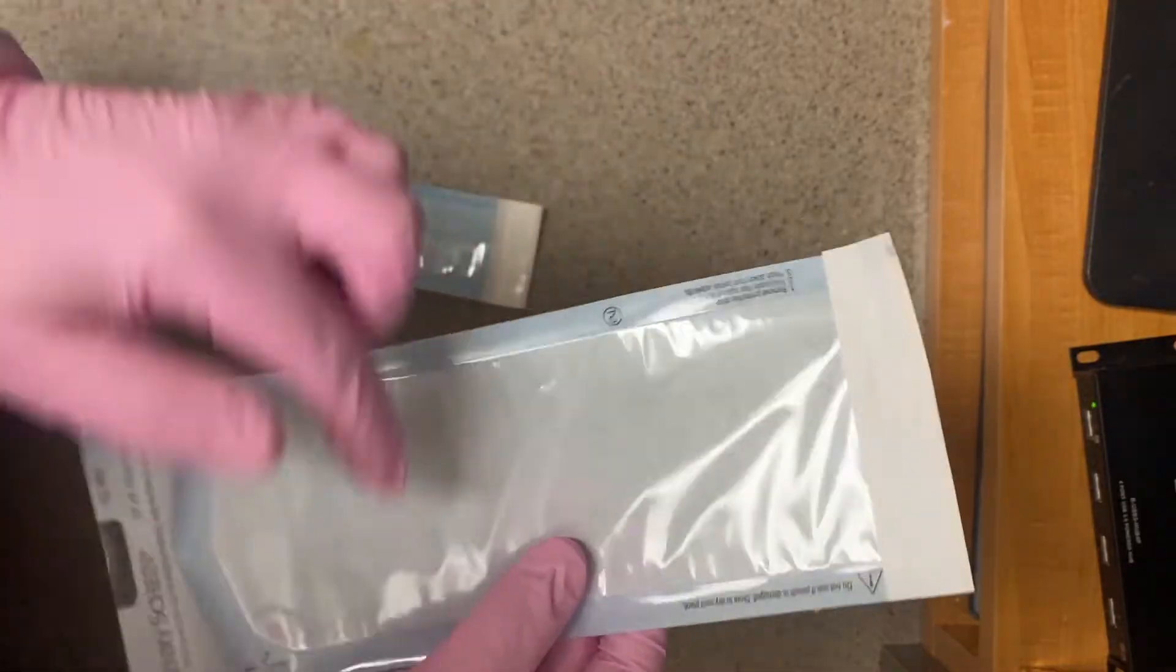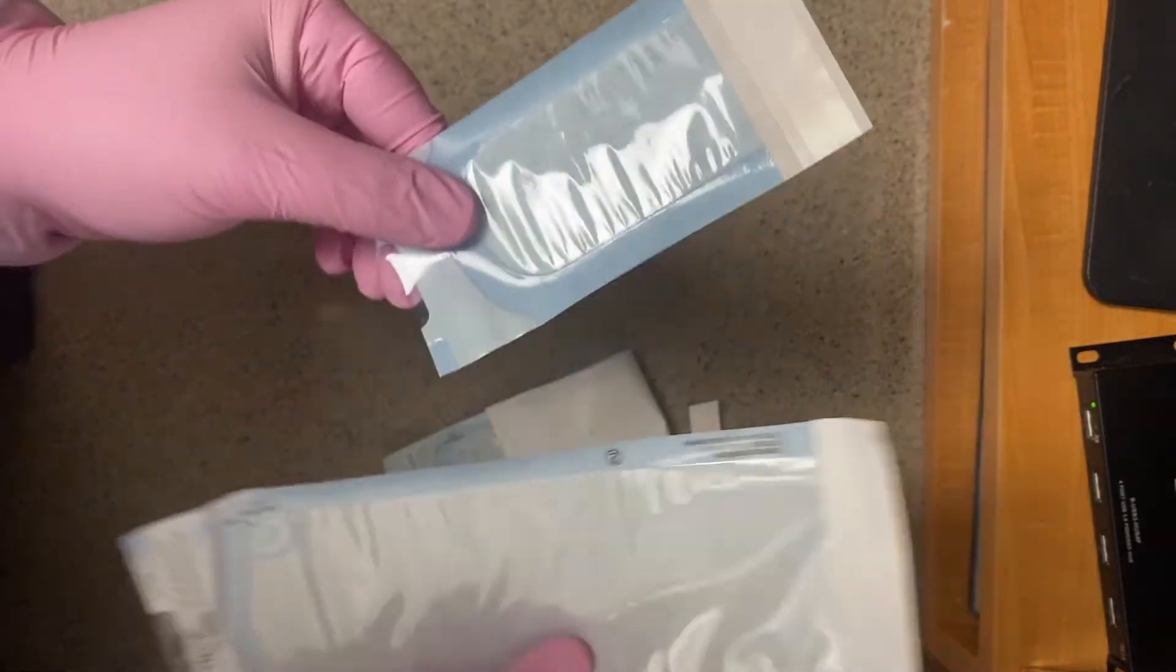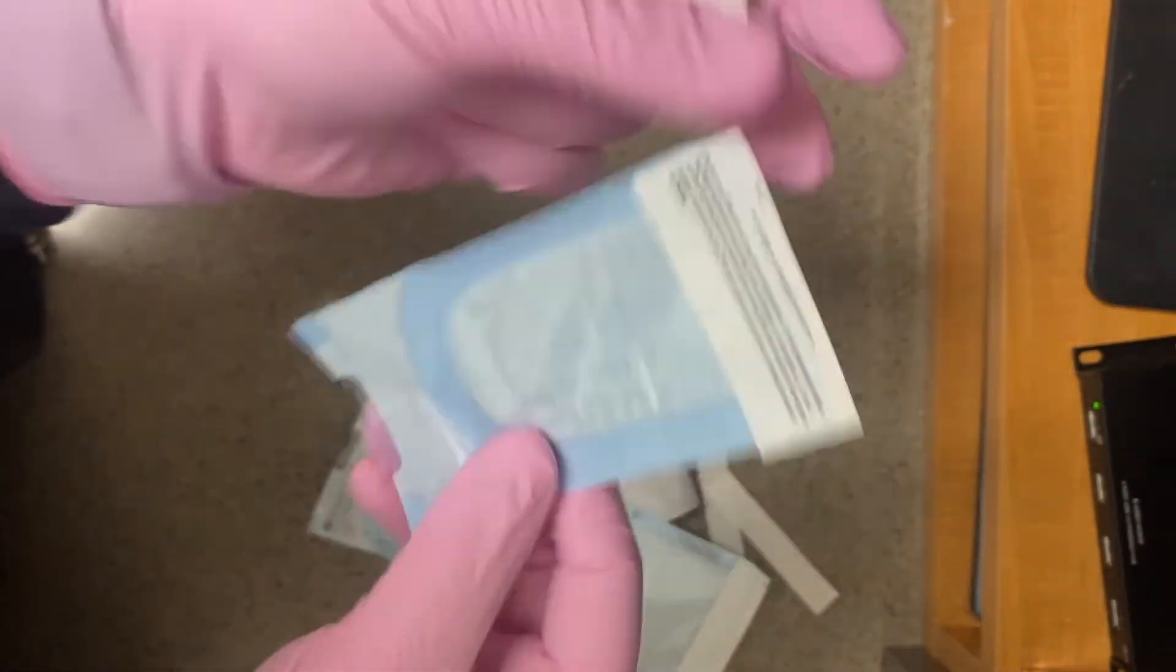That's why they make tons of different sizes, so you can fit whatever you need and still close it on this line to make sure it's sterile.